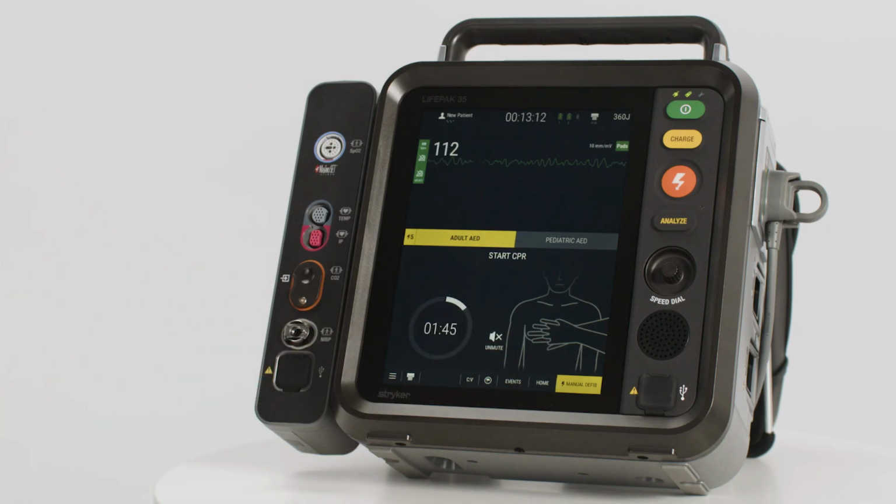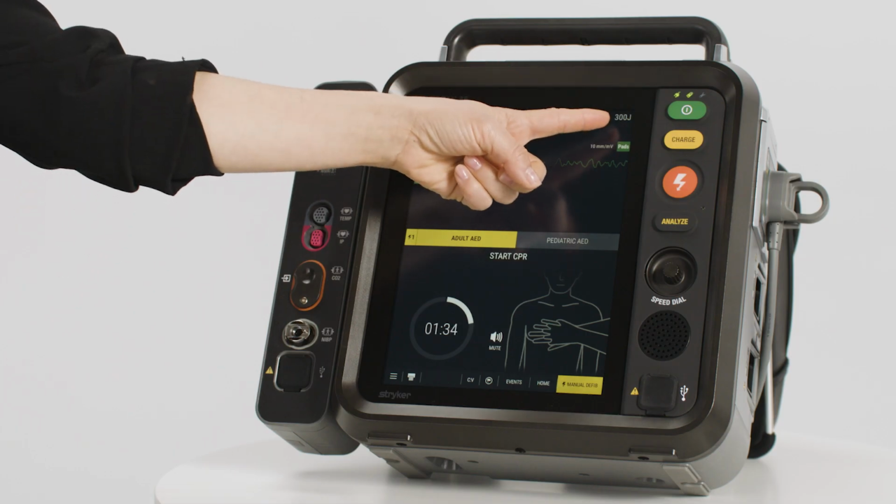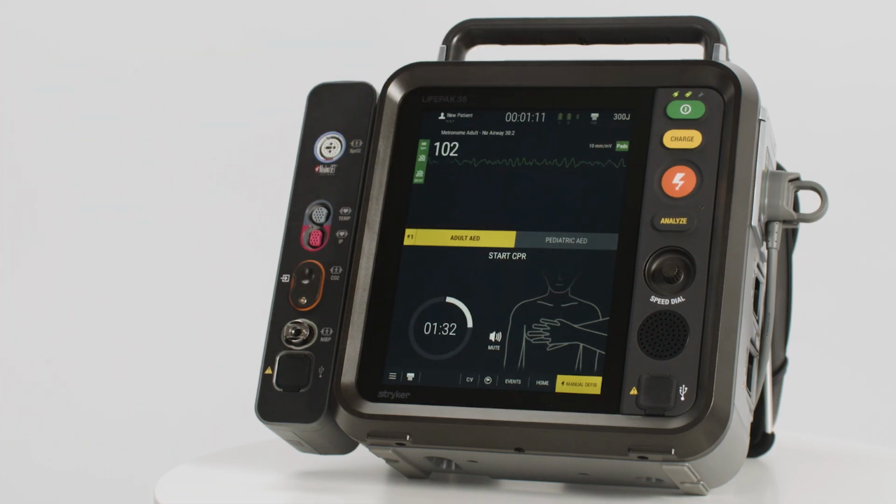The Start CPR prompt, countdown timer, CPR metronome, and ventilation prompts will continue for the duration specified in the CPR time, which may vary based on your site-specific policies and protocols. To mute and unmute the CPR metronome and ventilation prompts, press the speaker icon. It should be noted that this does not silence alarms. The shock counter indicates how many shocks have been delivered to the patient. Depending on device configuration, some devices may be set up to automatically escalate energy after a shock is delivered. Users can always check their next available energy at the top of the screen.